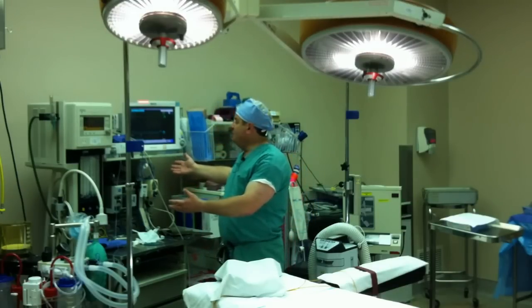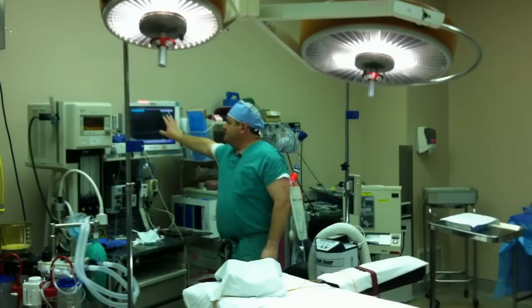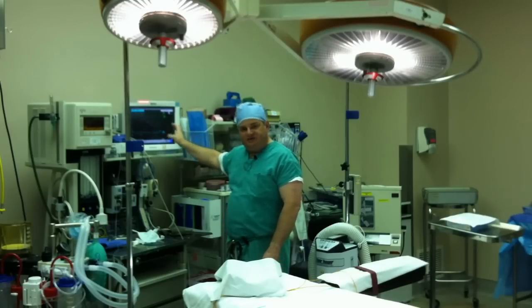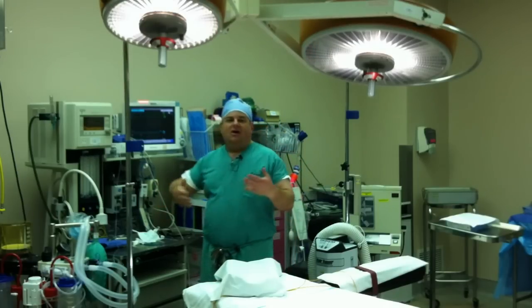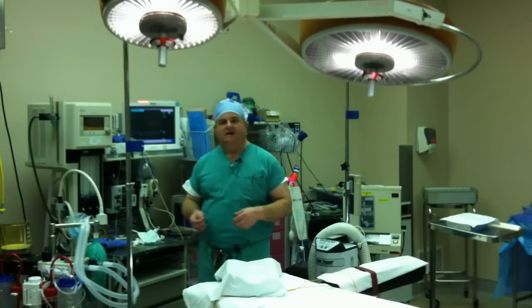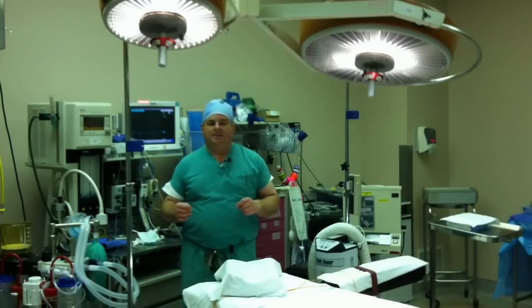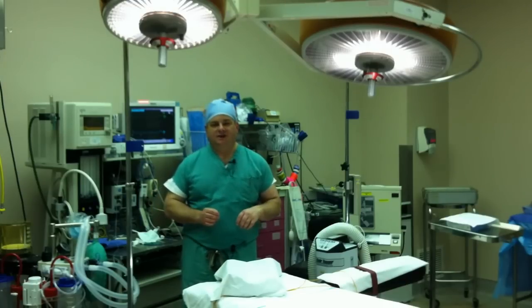Probably the most obvious thing behind me is the anesthesia unit. This anesthesia unit has a lot of different components. This is a touchscreen that allows the anesthesiologist to monitor all kinds of stuff about your physiology — your heart rate, EKG, blood pressure, pulse, how much oxygen is in your blood. There are also CO2 monitors, apnea monitors, and all kinds of other things that test different aspects of your body so the anesthesiologist can make sure your body is handling the anesthesia safely. For most c-sections, we use a spinal or epidural anesthetic instead of putting you to sleep completely — what we call general anesthesia.